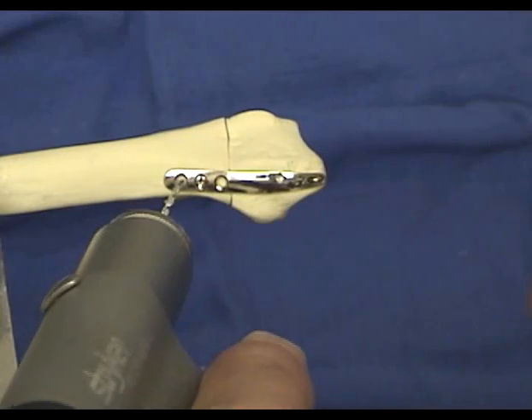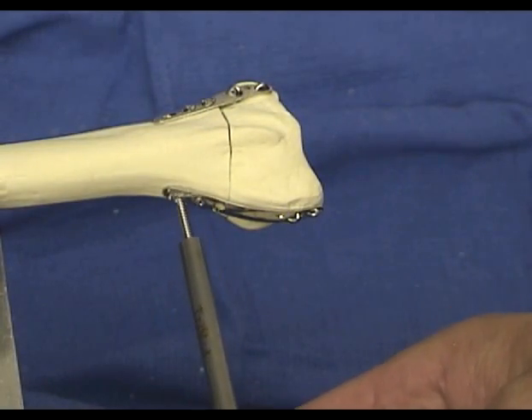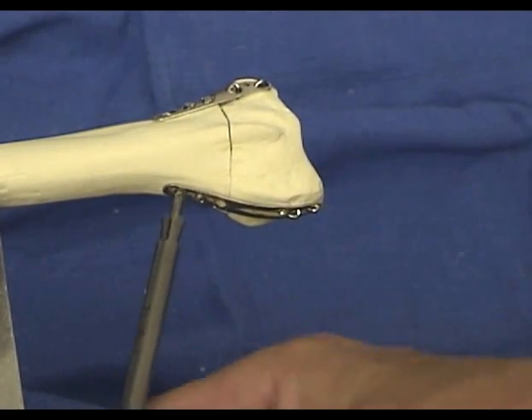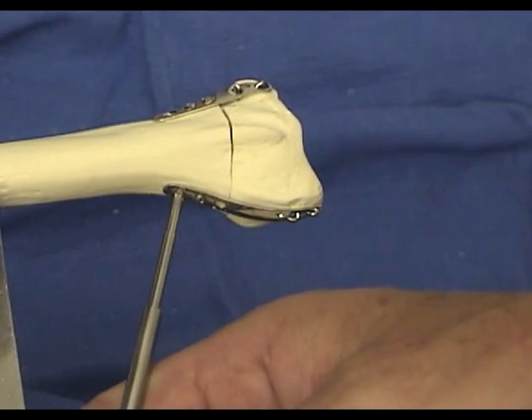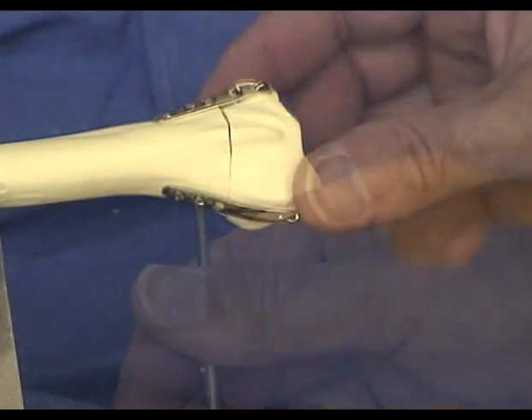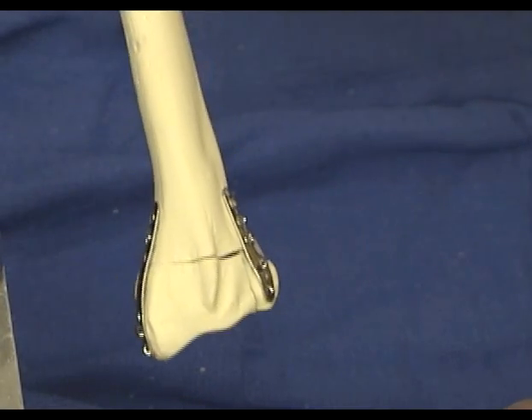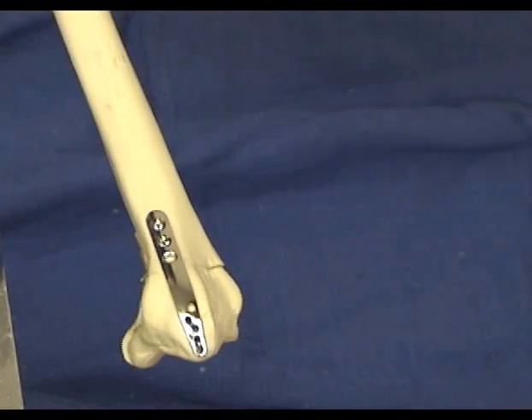Occasionally, the longer radial pin plate or ulnar pin plate may be needed. If the five-hole radial pin plate is used, an additional reverse bend should be made by hand at the proximal end of the plate to contour the plate into a gentle S-shaped curve. The pin plates add a dramatic improvement to the stability of fixation as compared to simple K-wires. The final appearance of the radial and ulnar pin plate on a radial column and ulnar corner fragment is shown.